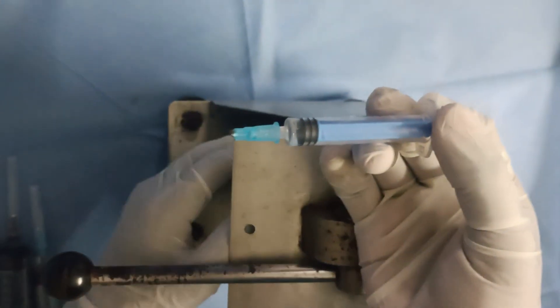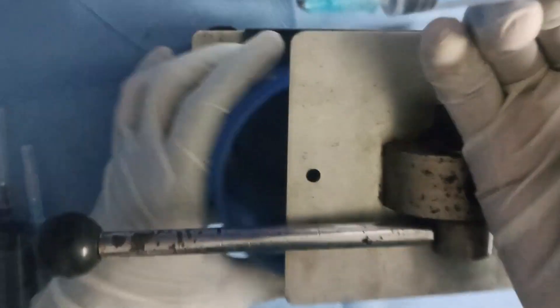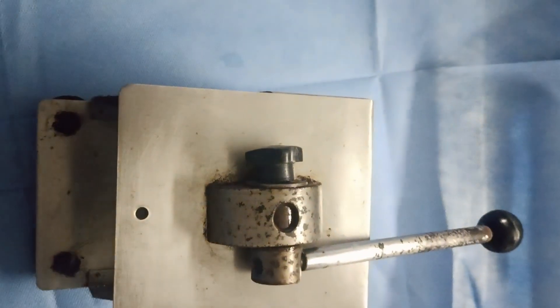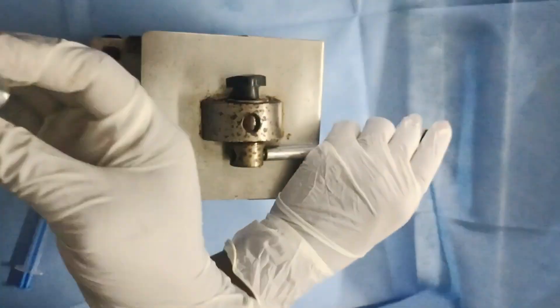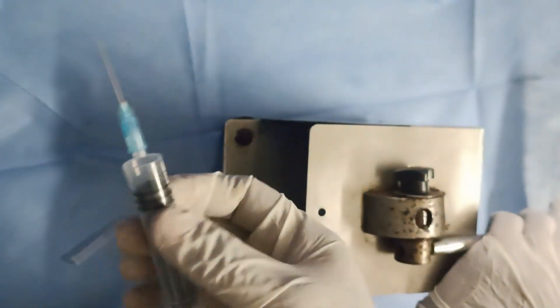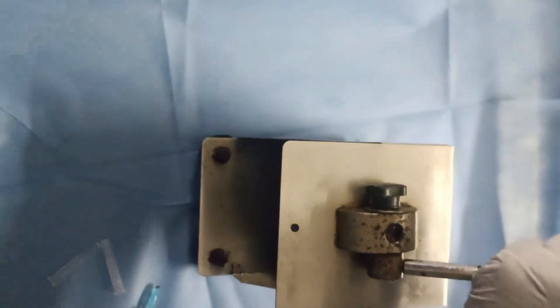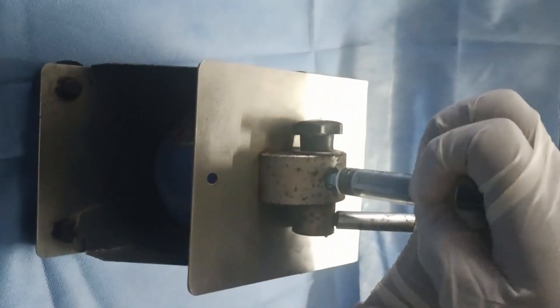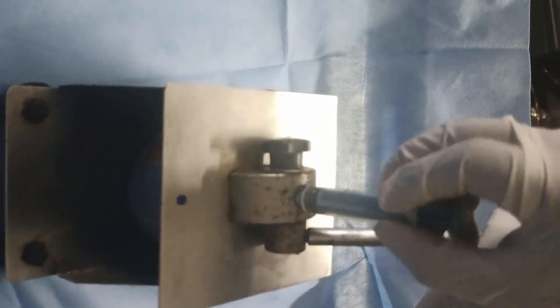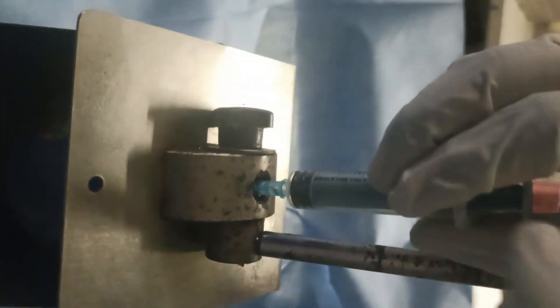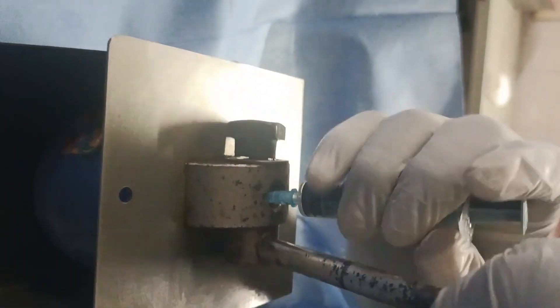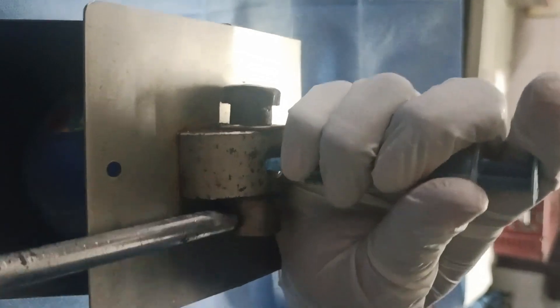Next, we'll remove the needle and place it in the device. Secure it properly, then perform the cutting operation to cut the needle.